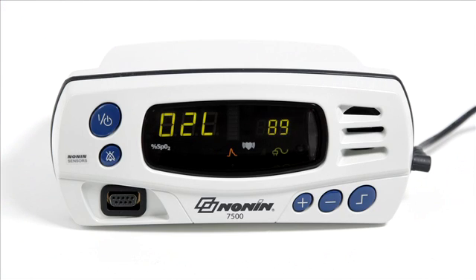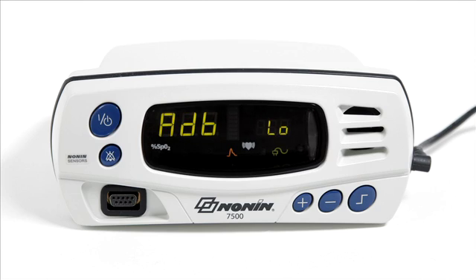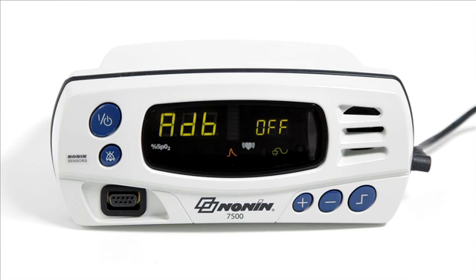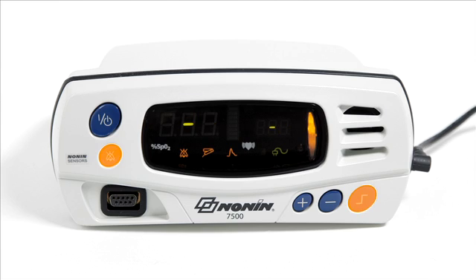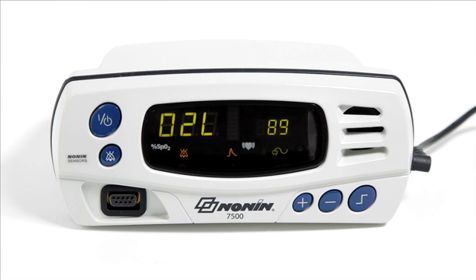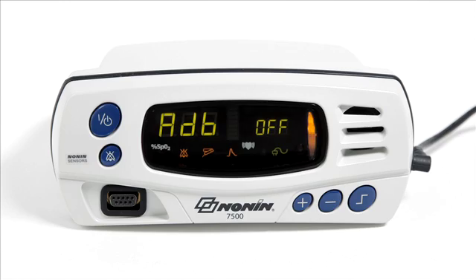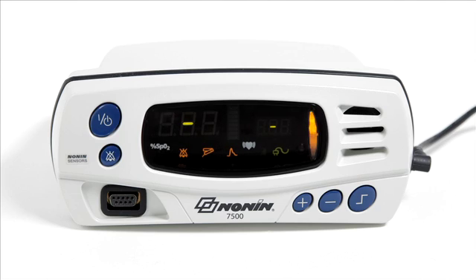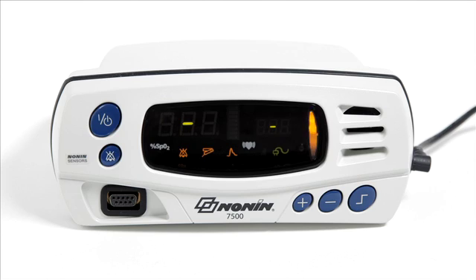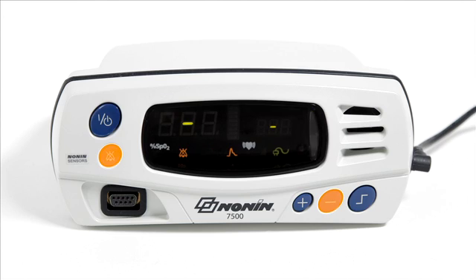You can also make the current alarm value limit settings the default settings — these values will be retained. To set the default values, press and hold the alarm silence key and press the limits button. To reset all limit values to the factory default settings, press and hold the alarm silence key and press the minus button to clear the custom settings.